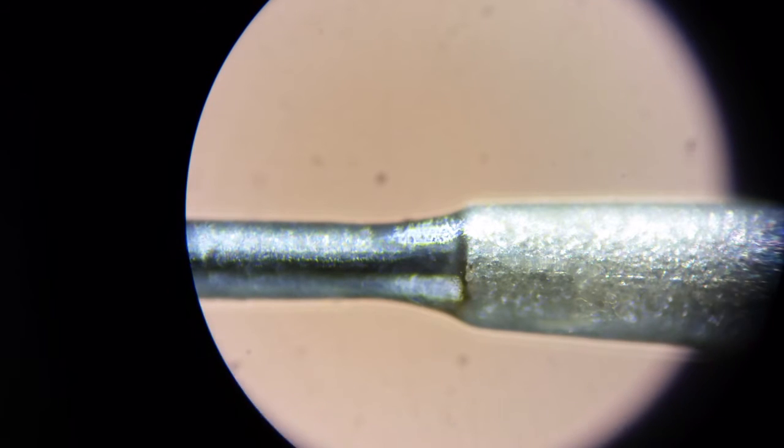Did that bounce out of the video? Okay. Here we are at the other end of the wire. This is the sensor end. This is the injection end. I always assumed there was a needle and some tube involved here, but that's not the case.